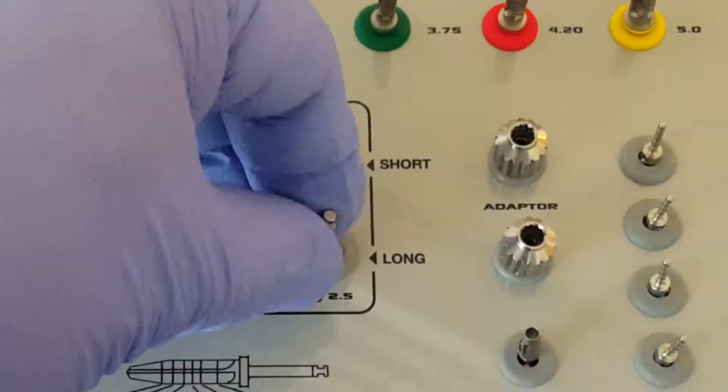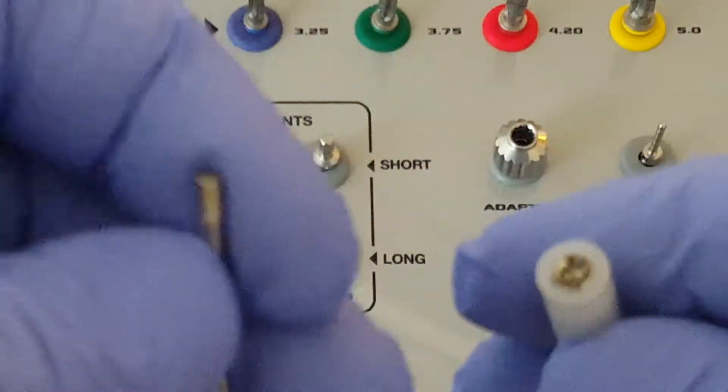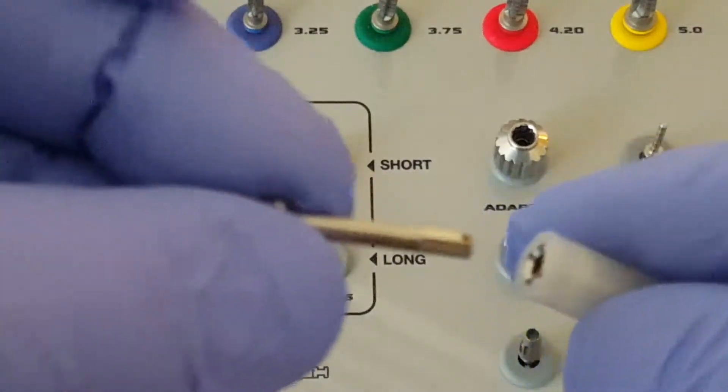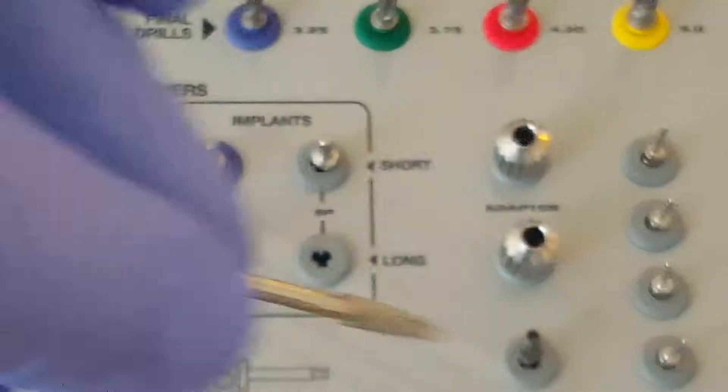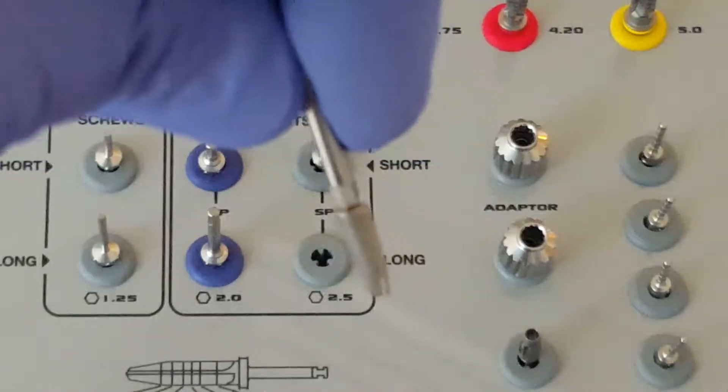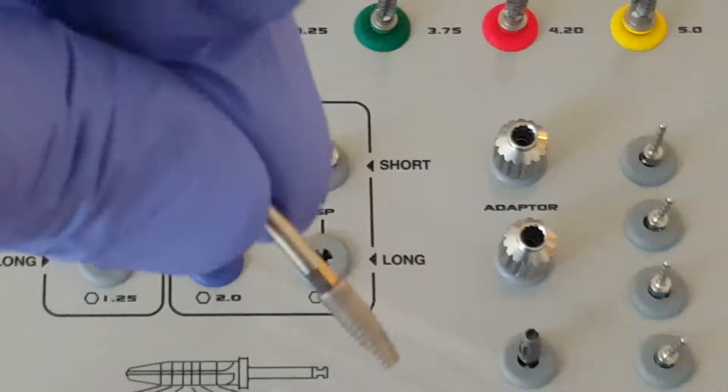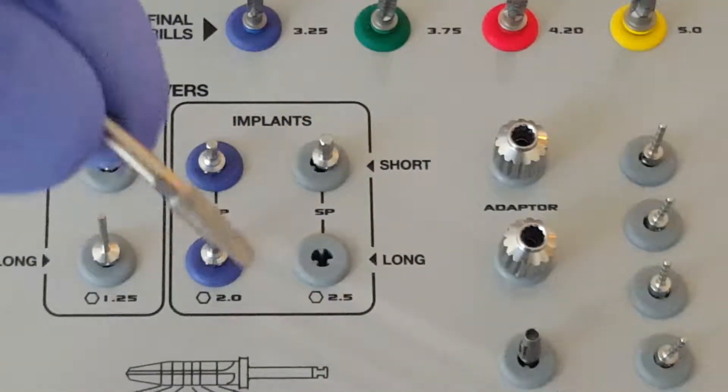We take the driver, the long but standard platform driver, and we simply insert it inside. Remove the implant, and again, very retentive, it's not going to fall or drop out of place.